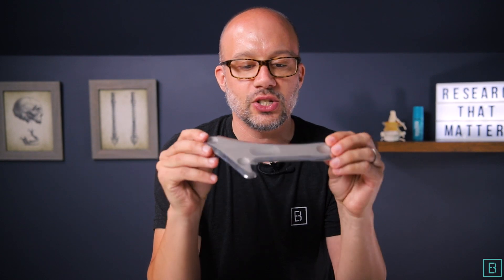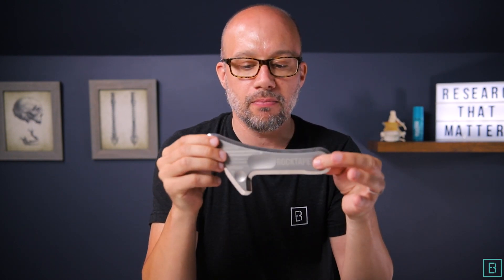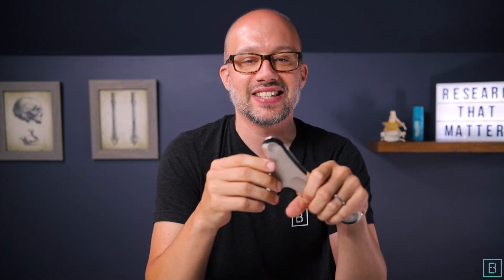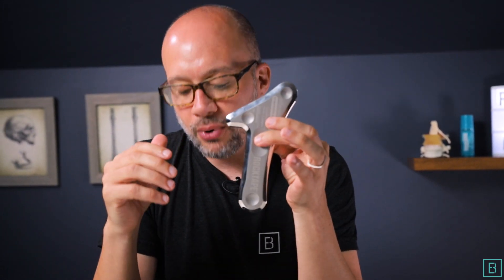As I take out Mohawk, you can see it's a beautifully designed tool. It's surgical stainless steel and there's a variety of dimples. Whether you are working large muscle groups or more sensitive and intricate spaces, you're going to be able to find an edge and also a grip using Mohawk. The weight is good — this is a tool you can use for hours and suffer very little fatigue. The weight is perfectly balanced and gives you the ability to save your fingers and your thumb. Multiple dimples give you multiple position points, and every single edge gives you an opportunity to work the tissue and the muscle group in a different way. There is not anywhere in the human body where you will not find an application for Mohawk, and I've seen tremendous success in extremities, rhomboids, and traps.